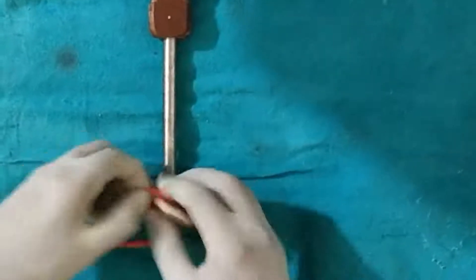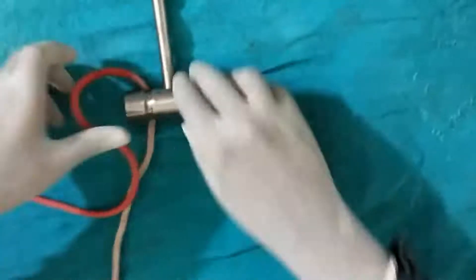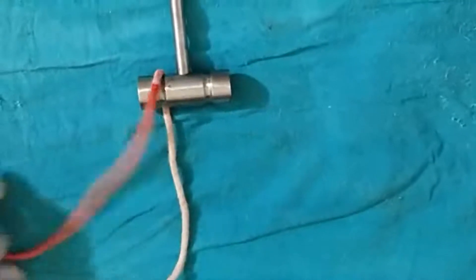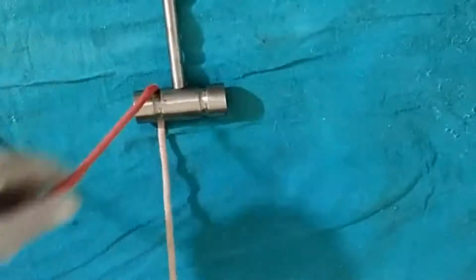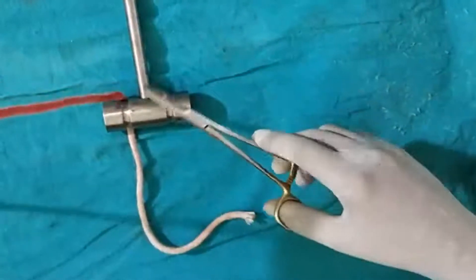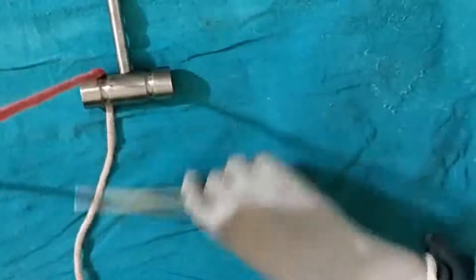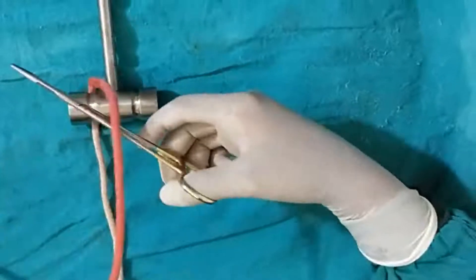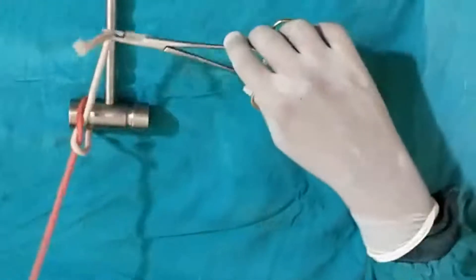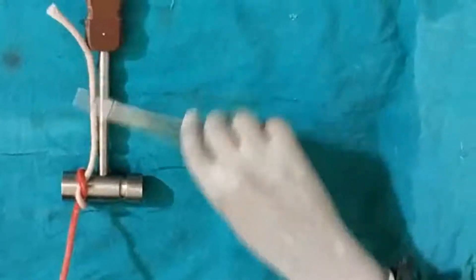The instrument tie is very easy — everyone is familiar with it. For the instrument tie, I will demonstrate with the same thread. You just take the needle holder and always keep the needle holder towards the inner face. If I make a loop, this is the inner face and this is the outer face. Never put the needle holder on the outer face — only on the inner face. Just make a loop and then pass it like this.